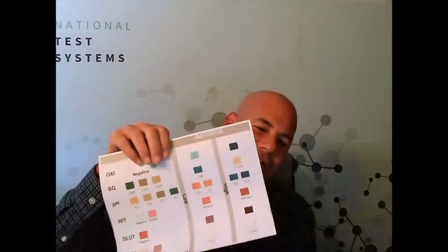The third thing we have on there, attachment 3, is the creatinine levels, and we're going to refer to this once or twice. You don't need to necessarily keep that one up, but it will provide some background information for some of the things that I'm telling you about creatinine. And then lastly, I went out of turn, but lastly we have the adulterant color chart, and that's actually this one here, where we're going to do the demo, compare the colors that we have, and see what our adulterants are reading, and more importantly, see what those readings might mean.